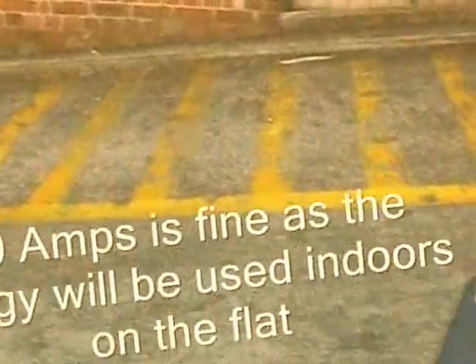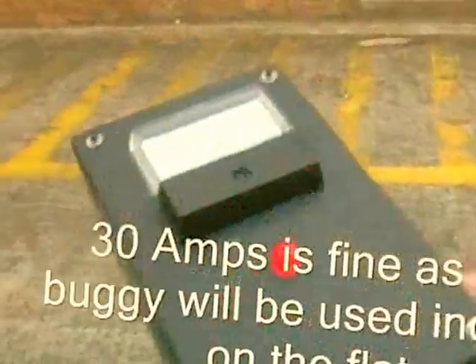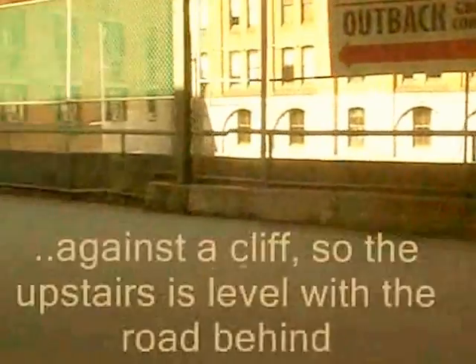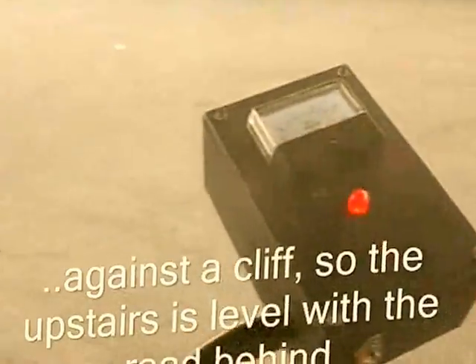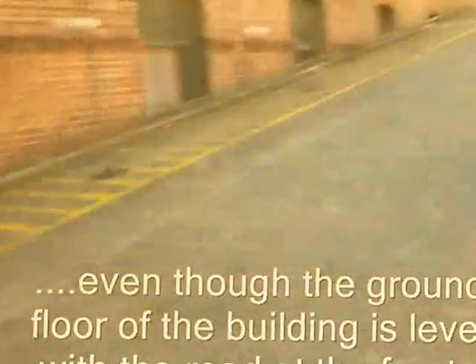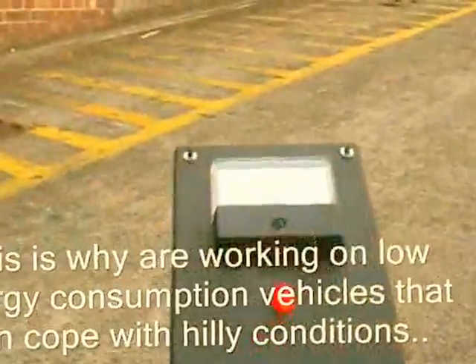The safety trip is gone, so I'm not going to back in round the turn. Now, the person I fixed this wheelchair for was absolutely adamant that they wanted the brakes to come on when he released the button. Which is why it stops with an almighty lurch every time I take my finger off the button — that is by request. I apologise if it's a bit lurchy, but it all works.